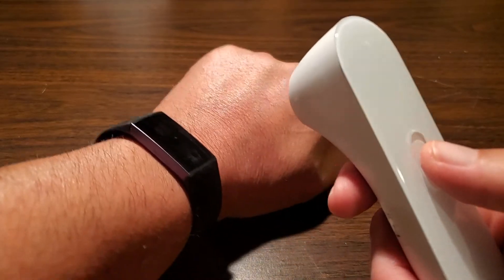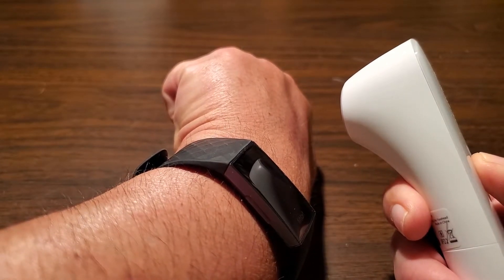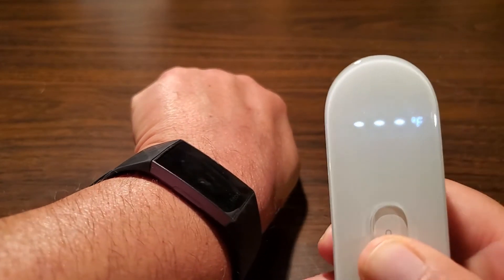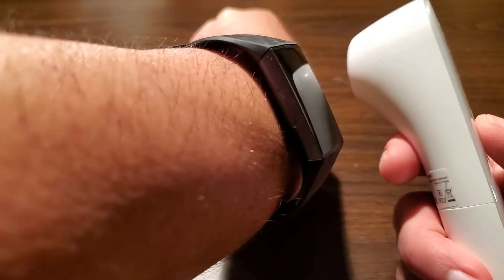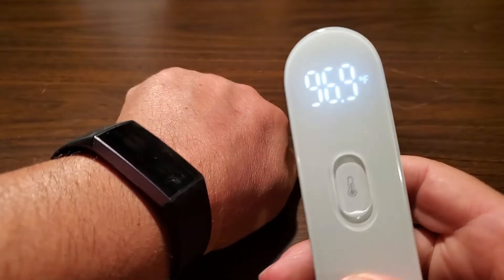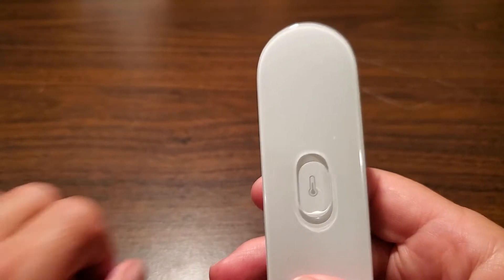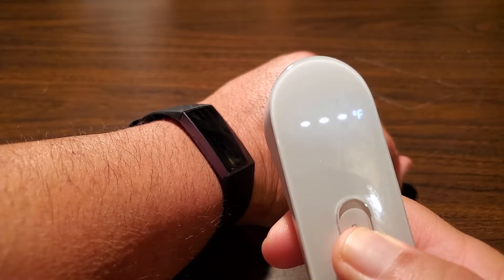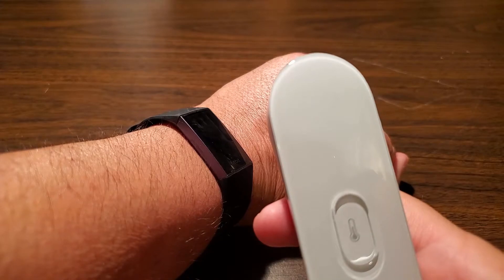If I demonstrate with it more than an inch away, it might not come back with a reading. I'm holding it now, and you can see that when you're out of range it's not going to give you a reading. If you do it an inch or less, it gives a little vibration and you can see it has a reading. If you're too far away, it'll just show you three dots in whatever units of measure you have. After a few seconds, it'll turn itself off.